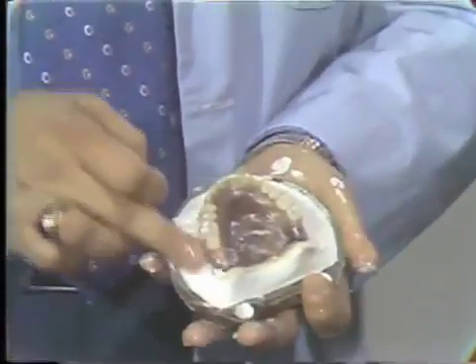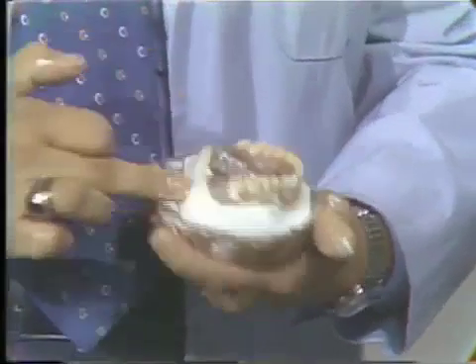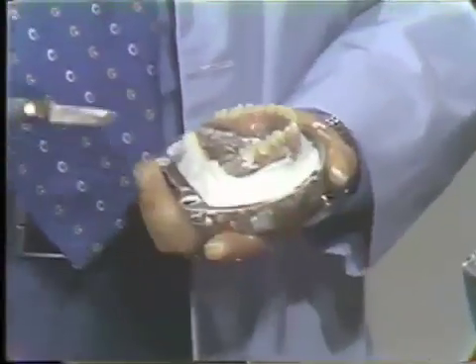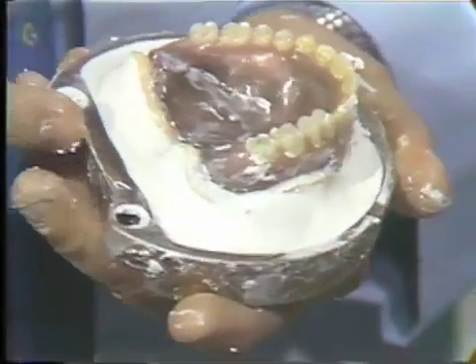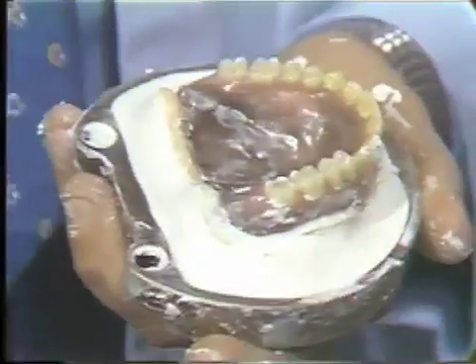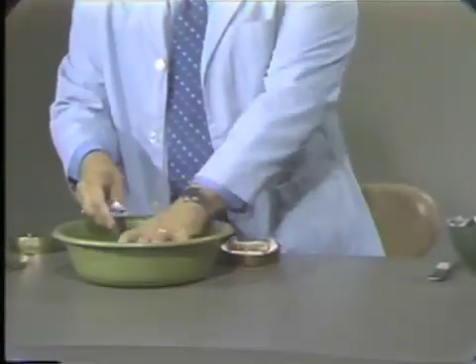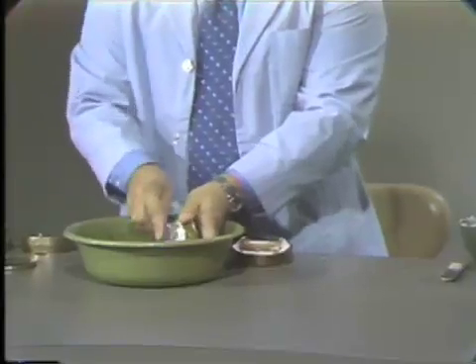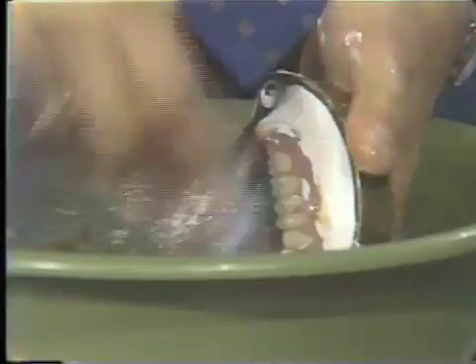After the model plaster has gotten very near the final set, you can finish contouring the first pour. You will notice that there is stone on the wax, but that we have adequately brought the plaster up to the boxing edge. At this point, we will put it in water and remove the stone that has adhered to the wax. This is most conveniently done in a sink with running water. I merely will take a toothbrush and remove the excess plaster from the wax.